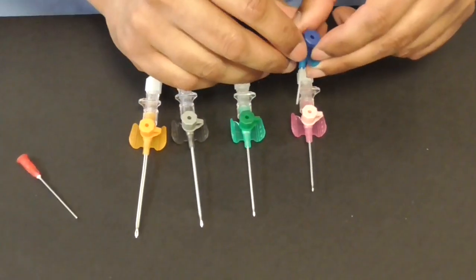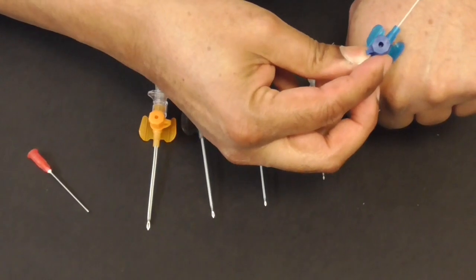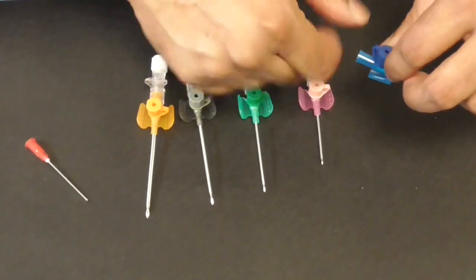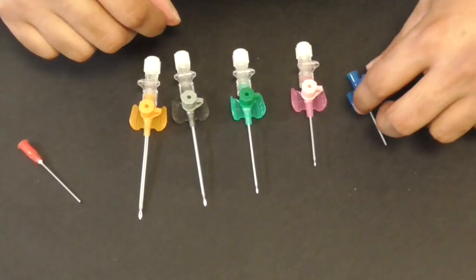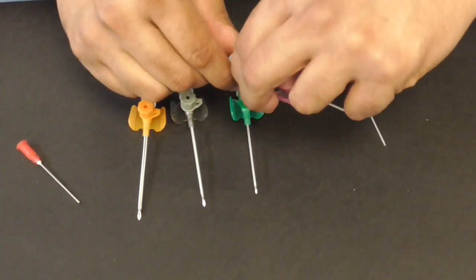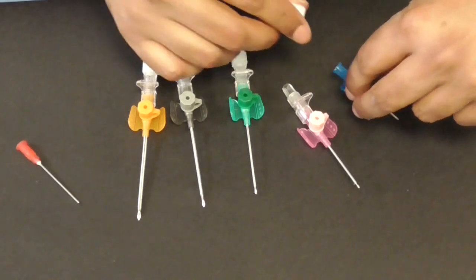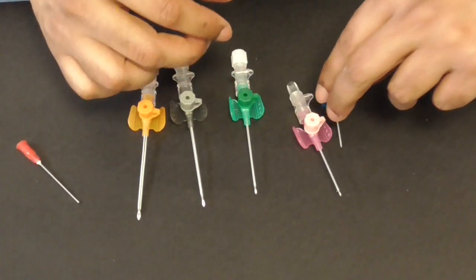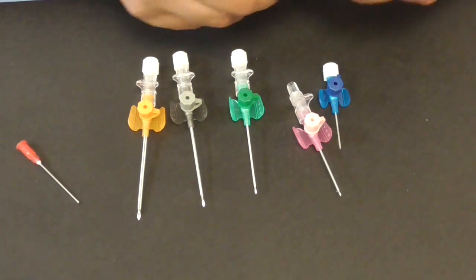And then that's left with a little plastic cannula which goes inside the vein and sits nicely for you. And this bit here you attach on whatever fluid you're going to give and if you're not going to give a fluid you can put a bung on it to prevent obviously bleeding across.